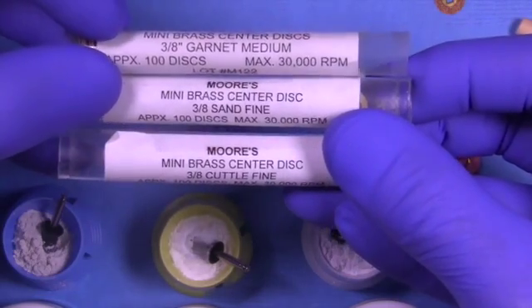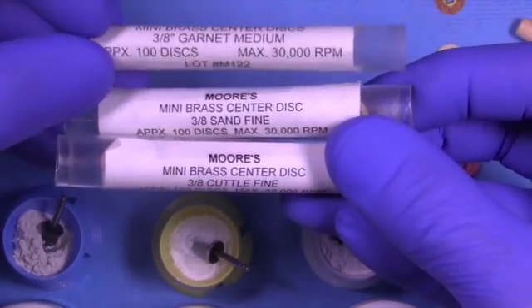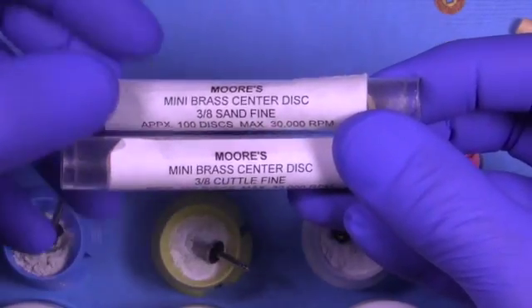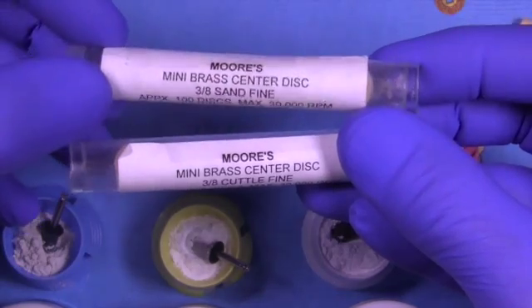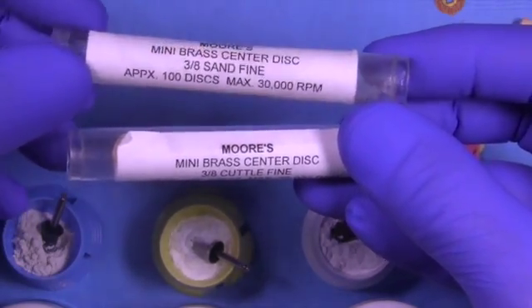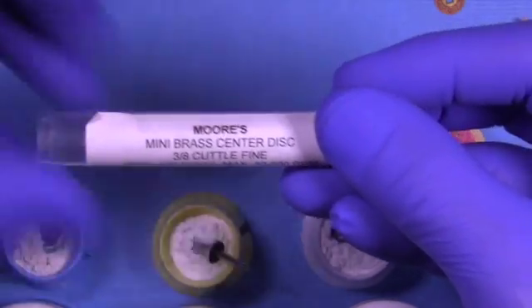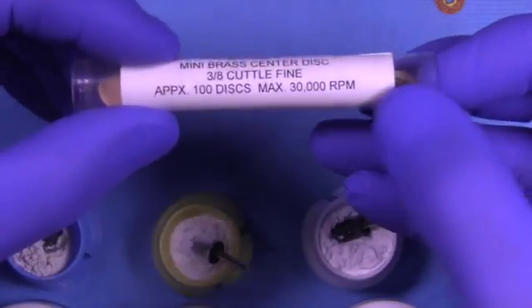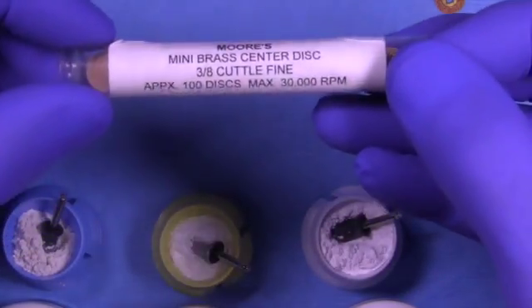The polishing is handled with the powders, so I like to separate these in my mind. One step is to try to get the gold and the tooth on the same plane and get the surface as smooth as possible. Then the next step would be to go into the polishing powders to obtain a very high luster and highly reflective surface.